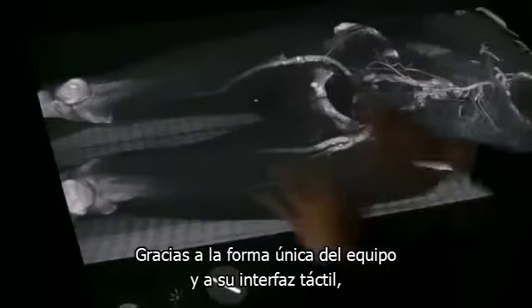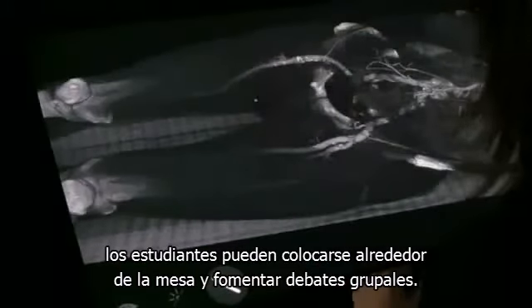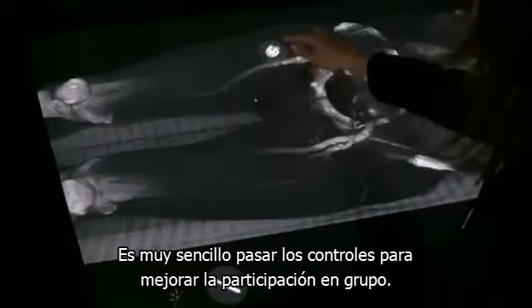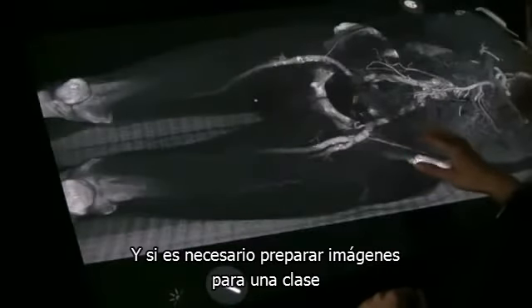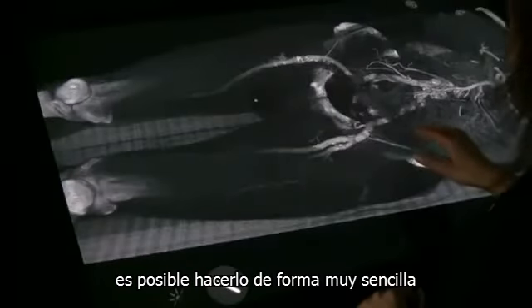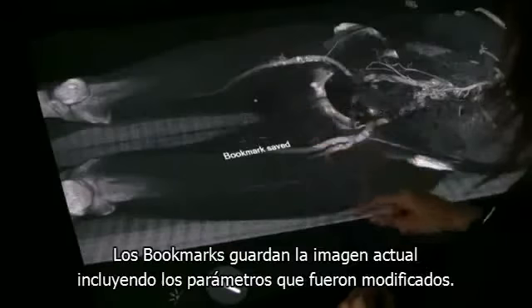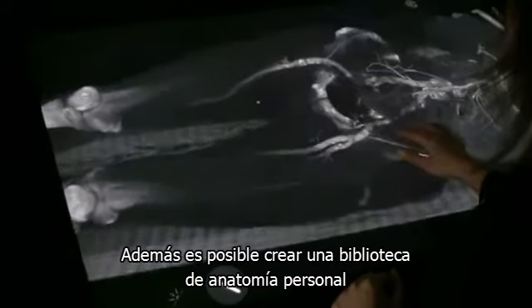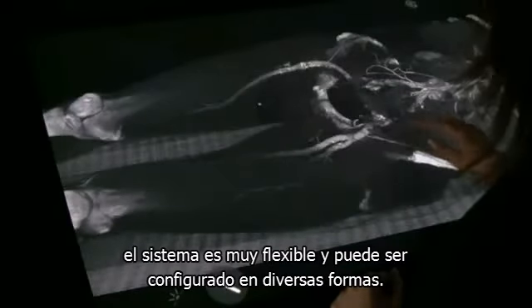And thanks to the unique format and thanks to the touch interface, the students can gather around the visualization table for group discussions. You can easily hand over the commands to even further enhance the group discussions. And if you need to prepare lectures beforehand, you can easily do that by using something that is called a bookmark. The bookmark saves the current view of the volume, including any settings made. You can also create your own anatomical library arranged in the way that you prefer. The system is very flexible and it can be configured in many ways.